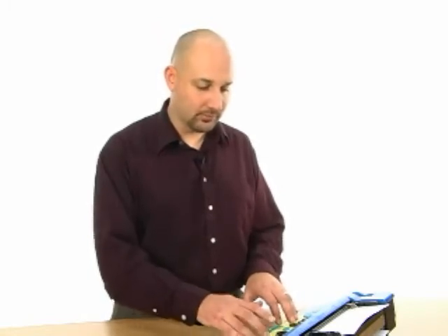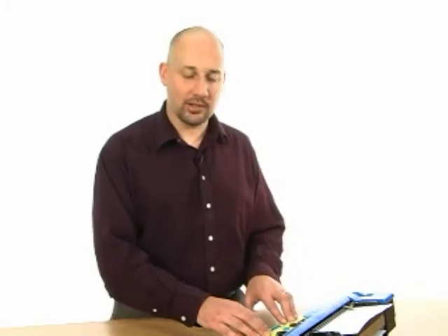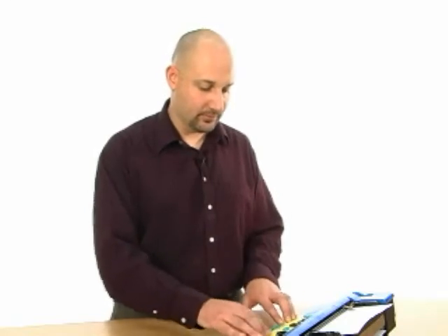4. OK. And again, when you hit new line, it will return to the margin position. And again, if you wanted to remove that, you could just issue the command LM. Command L, M. OK. There's also a command for setting the right margin, which is RM.